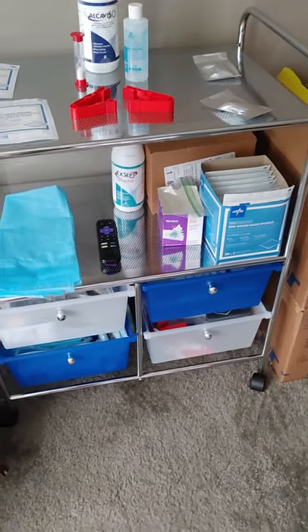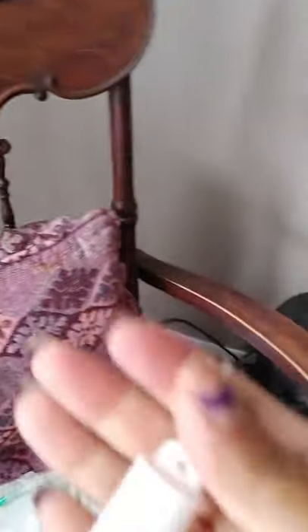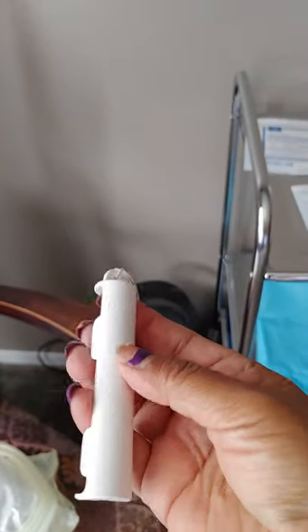I love this little cart — again, I think it's about $60, thanks to mom and dad who bought it for me. Another thing you want to get is this thing — I stress this a lot because this is what you use to put your catheter in when you take a shower. It helps hold it in place so you're not swinging around; you don't want to rip your port out trying to get your scrub on in the shower. I was drying it out and put it in here too. And my good old friend Heparin lives back there for when I need it — I just inject that into my bags.